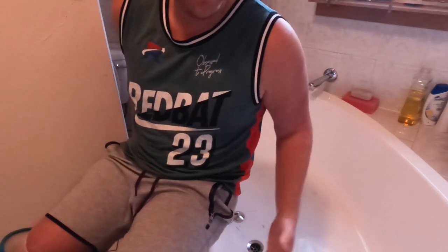That keeps all the water out, so your cast or moon boot won't get wet. This is a good size because the moon boot — an air cast — is quite big and heavy. The silicone sleeve goes around it pretty well; it's made for a cast but works great for the air cast too.